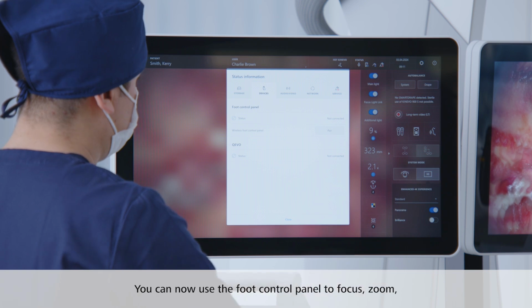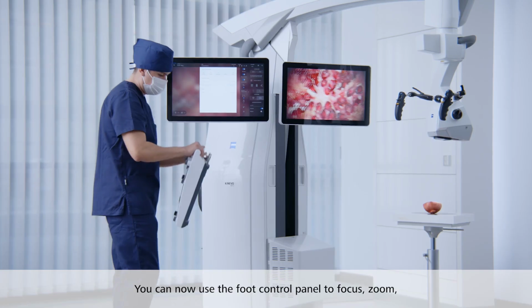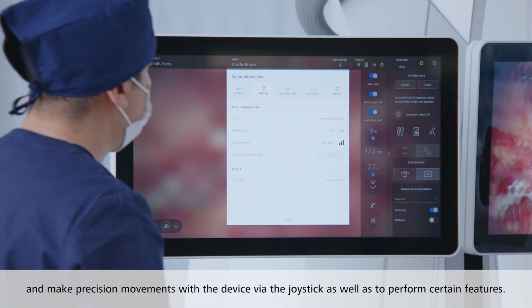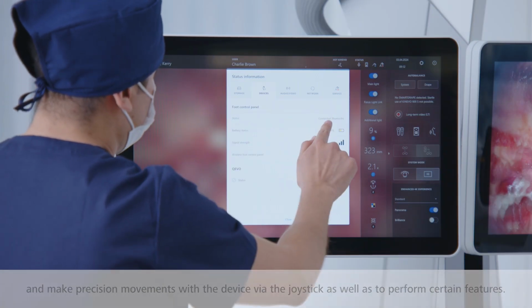You can now use the foot control panel to focus, zoom, and make precision movements with the device via the joystick, as well as to perform certain features.